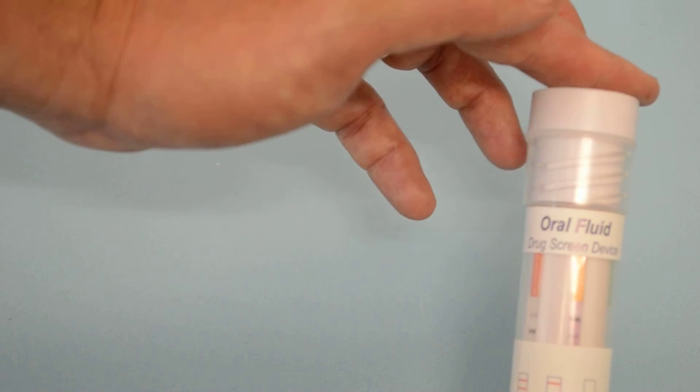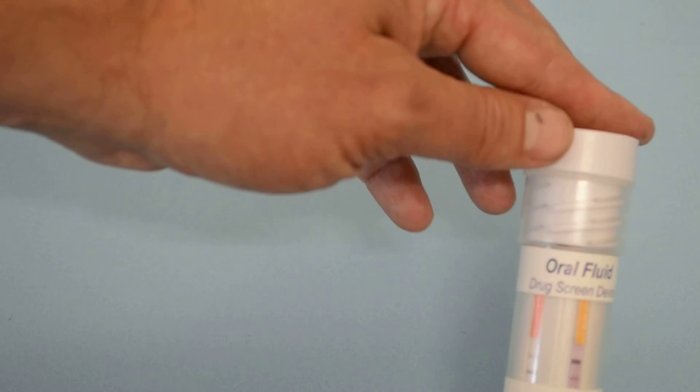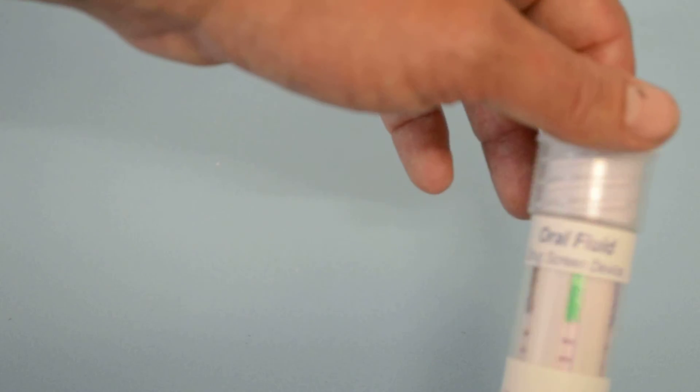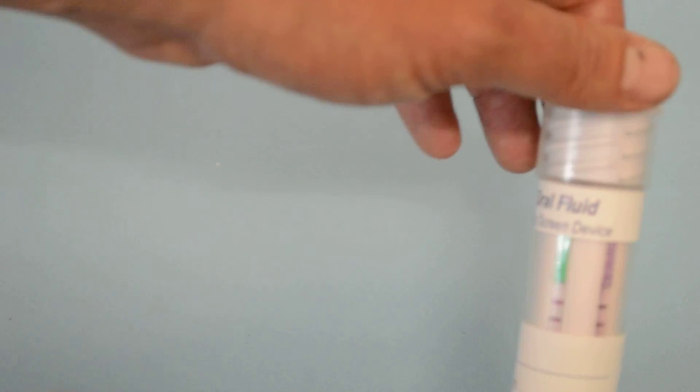So that is UK drug testing six in one saliva tube test. This one screens as we demonstrated for six drugs, giving nice clear easy results within five to ten minutes.